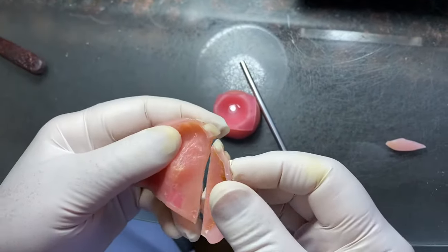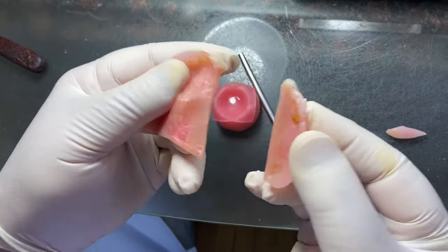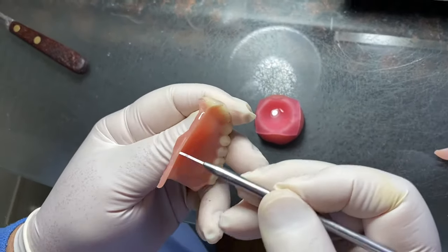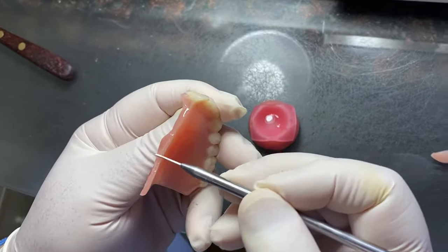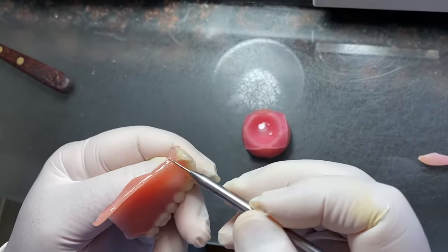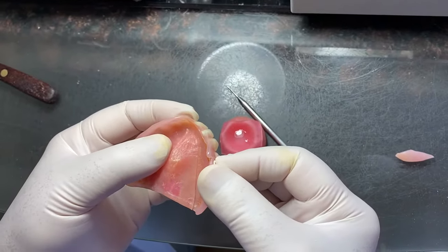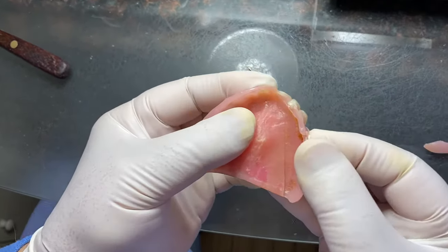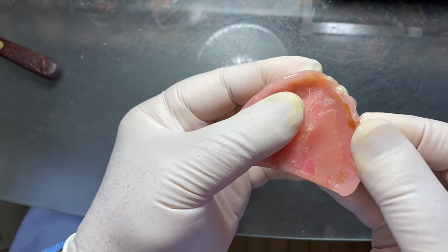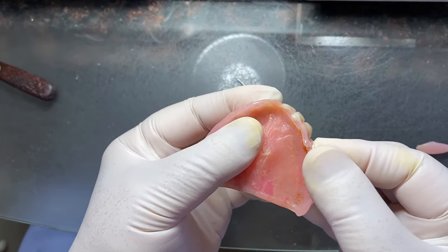Then you put the glue. I'm practicing it, how it fits. Now I learn how it fits, then I put this like this. Glue. Then I put it, hold it like this — no mess. Hold it for a few seconds, about one minute.